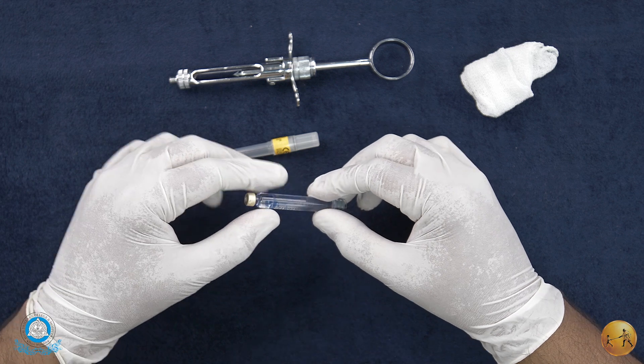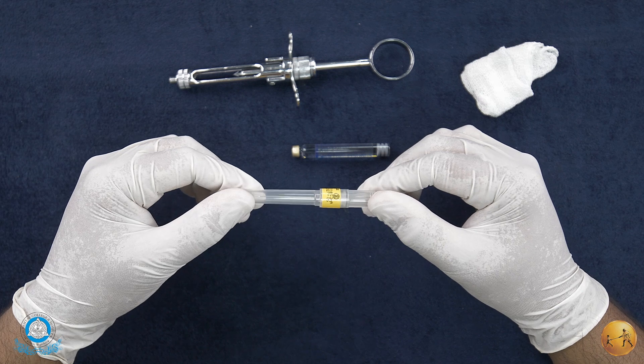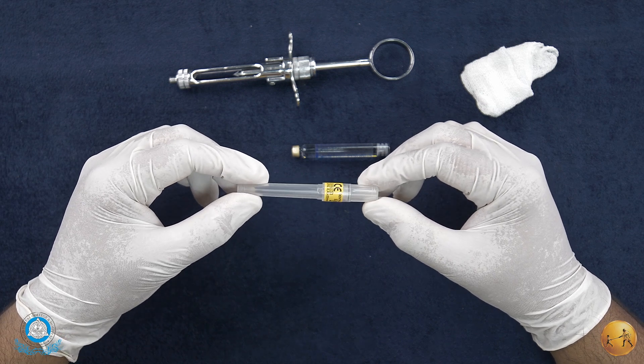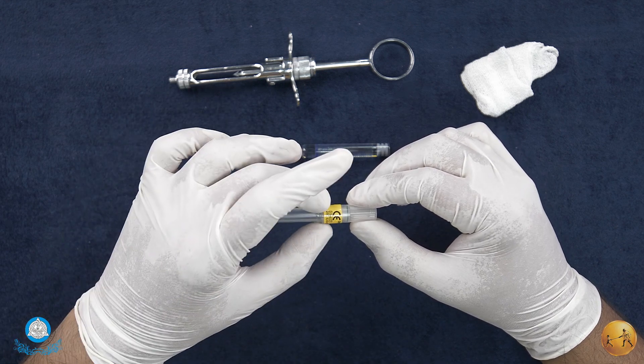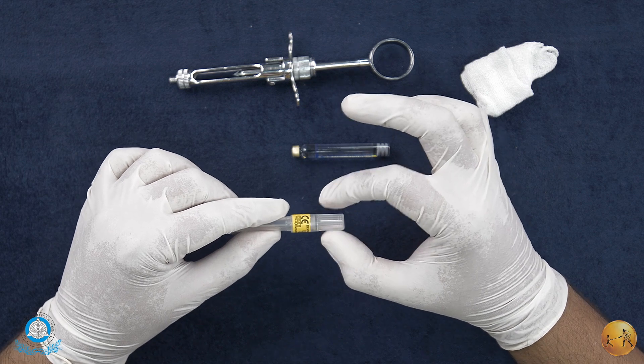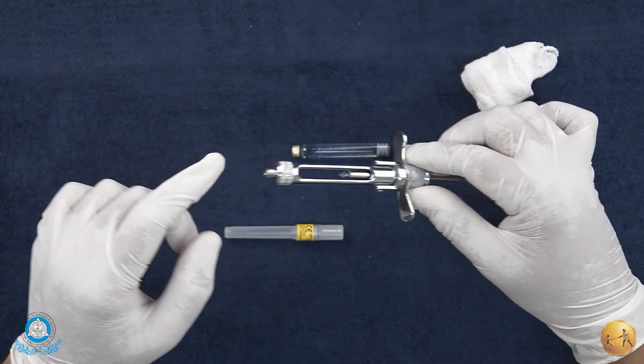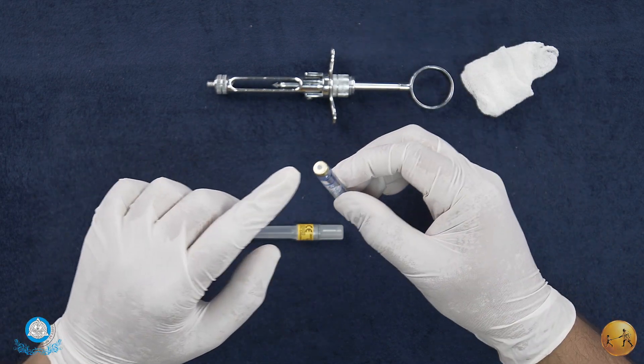This is the needle. Note that this is a custom made needle. It has two components to it: the actual needle that is going to be penetrating patient tissues, and another component which basically enters through the needle adapter to breach the diaphragm of the cartridge itself.